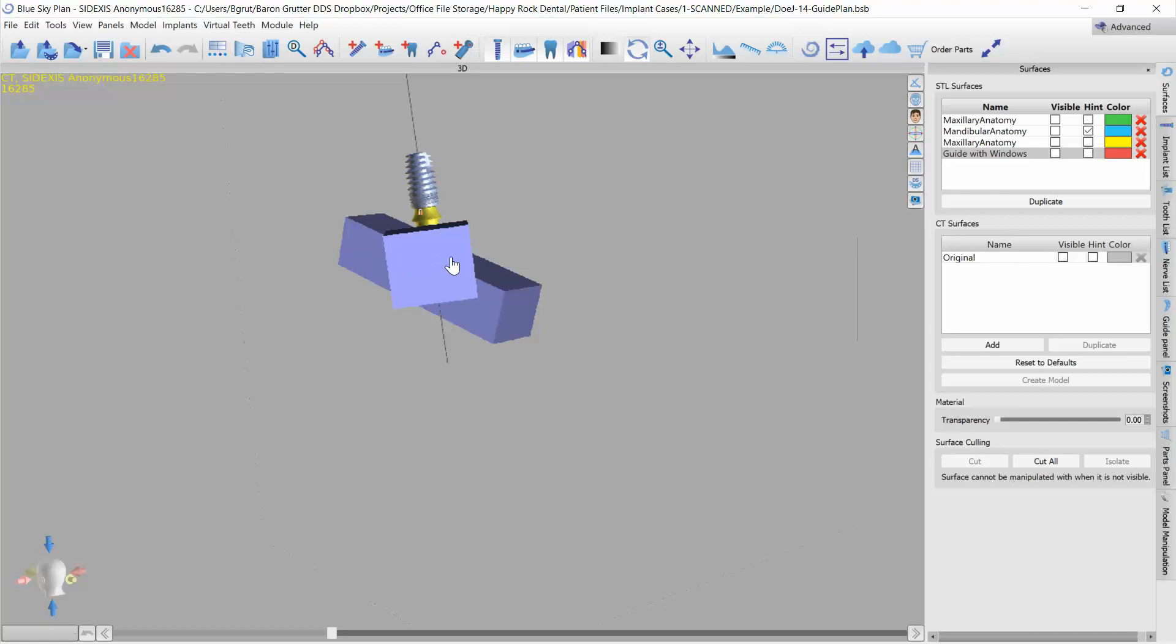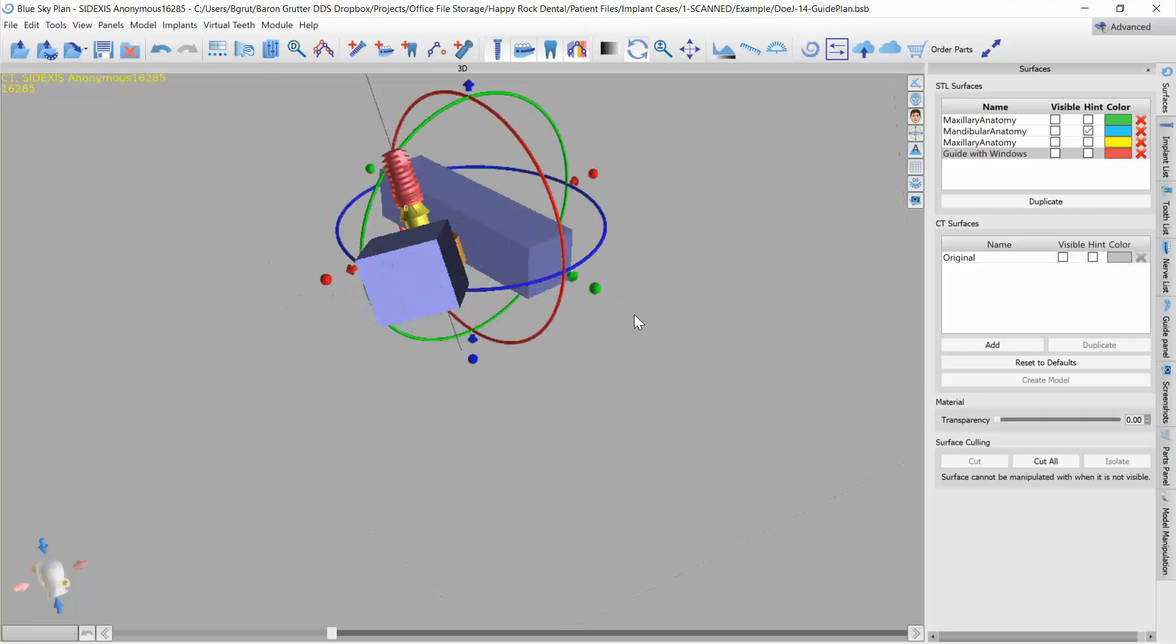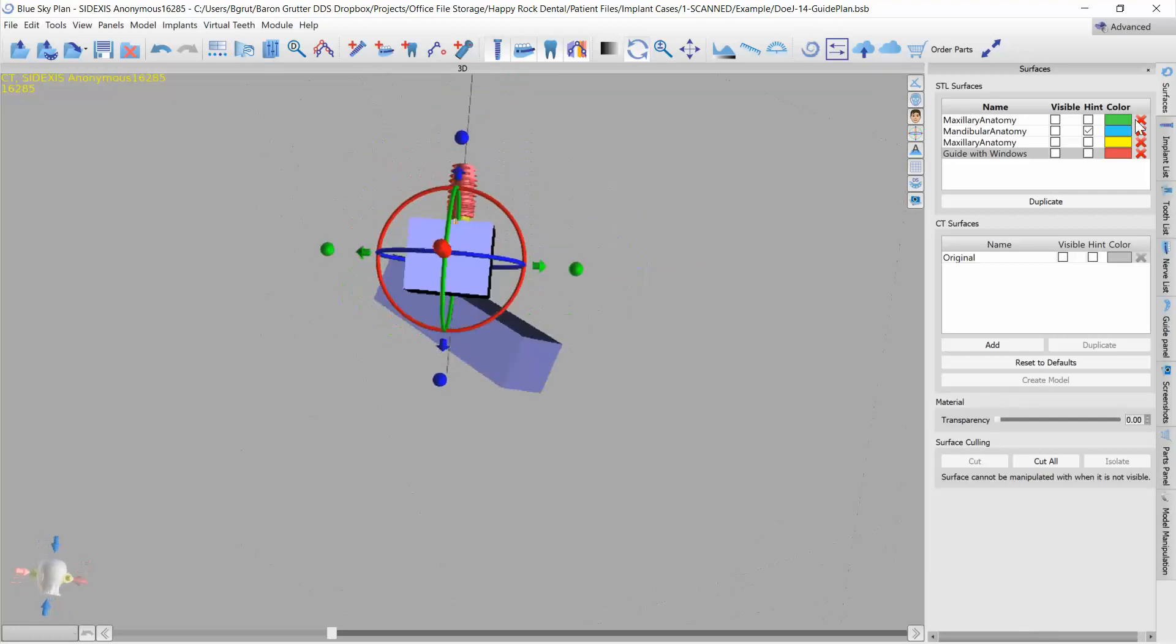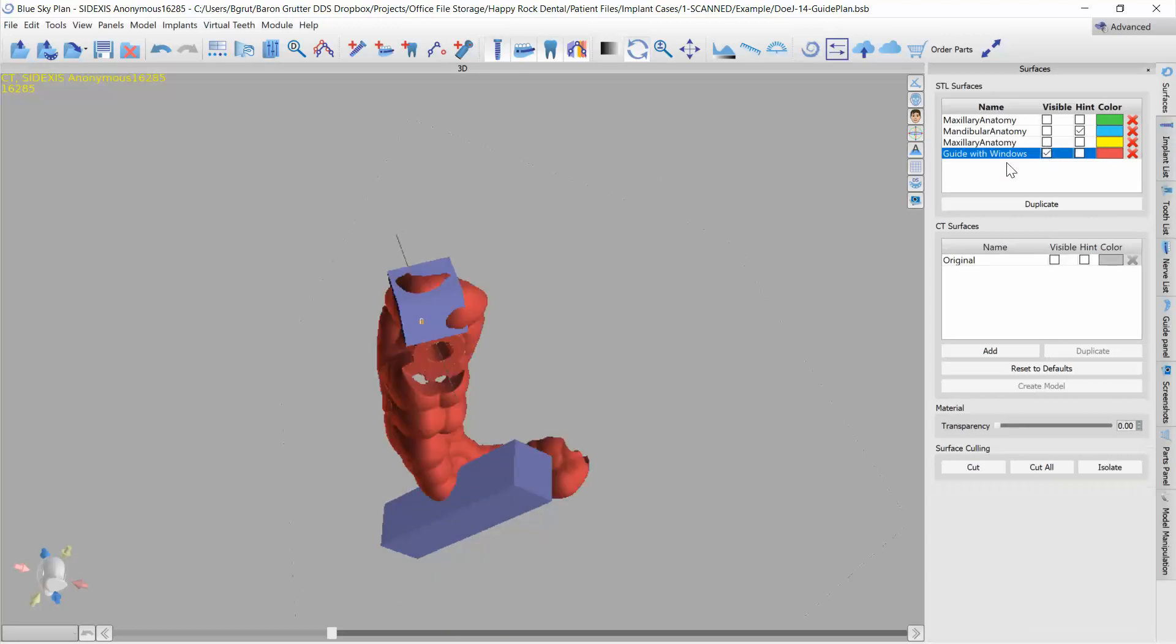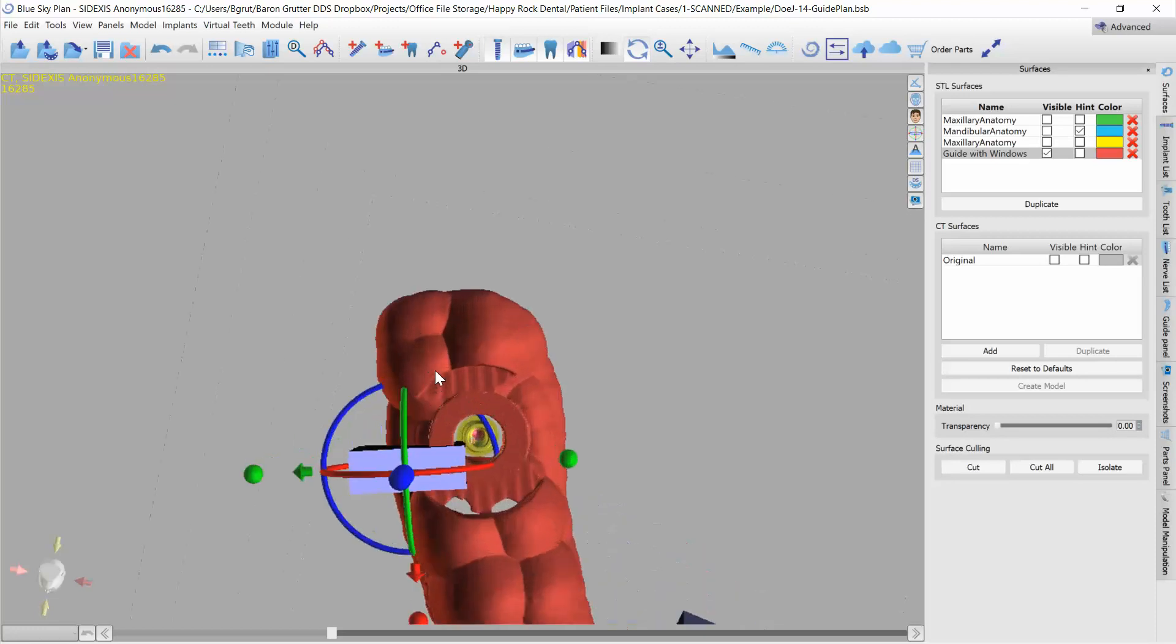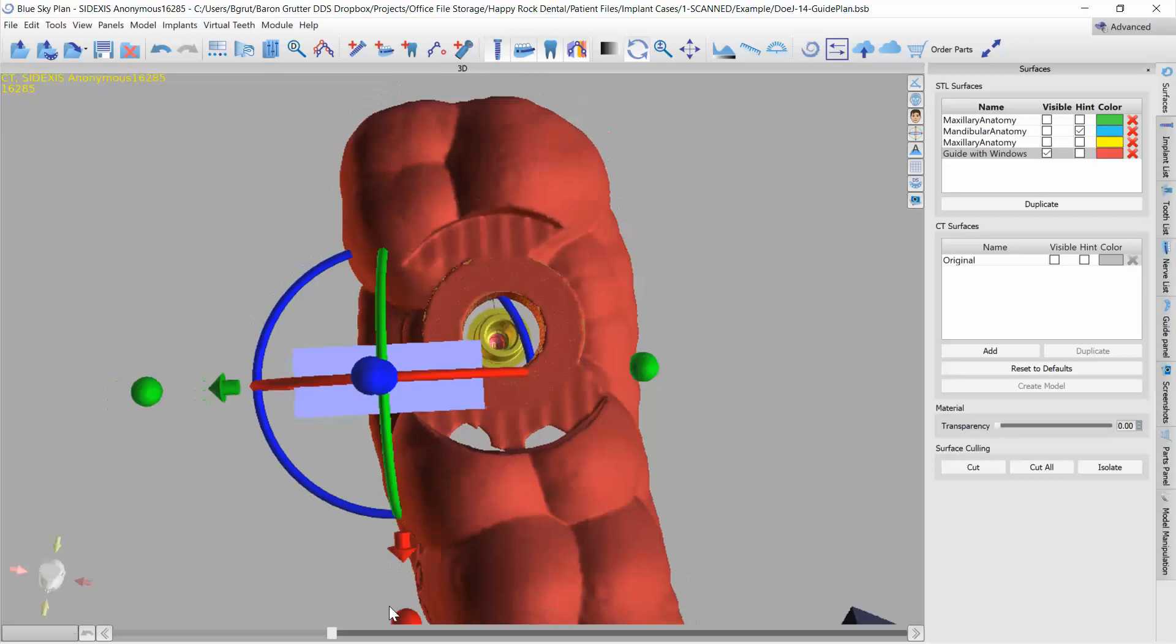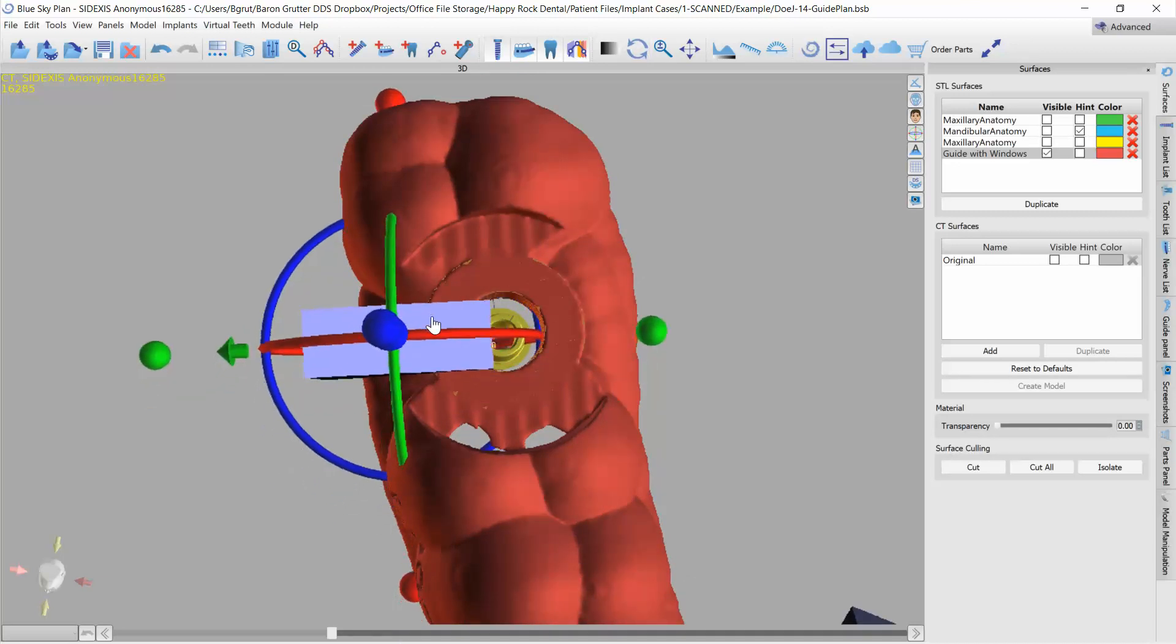And so now I can go ahead and bring it to this end so that this circle now lines up. You'll see that this one's a bit more off. Let's center it first, okay. And now I can rotate to line it up and you can see that the arrows on top and bottom are pretty well aligned with this.